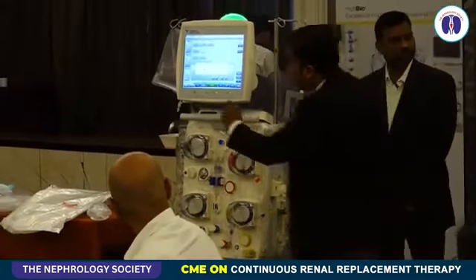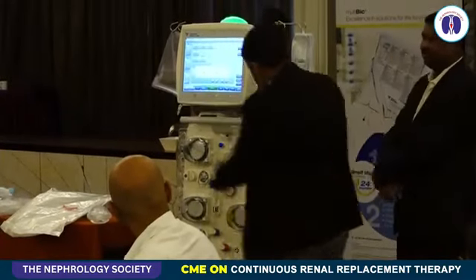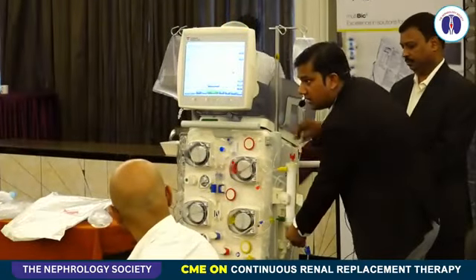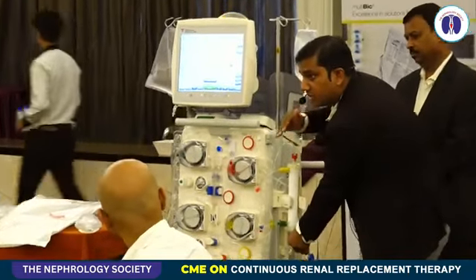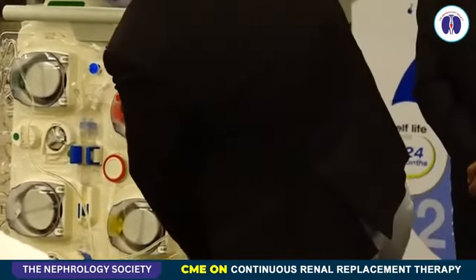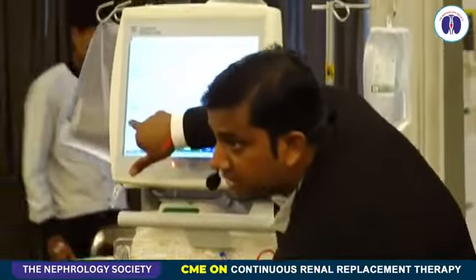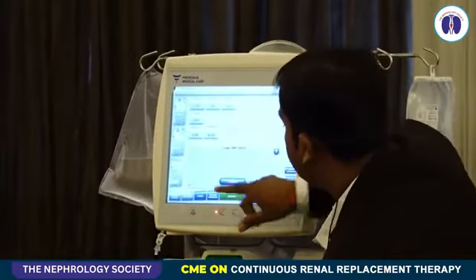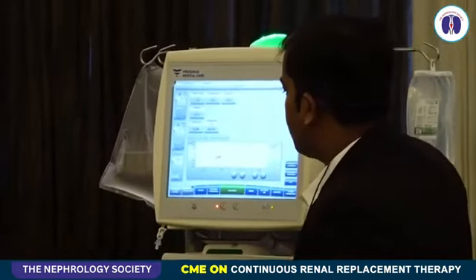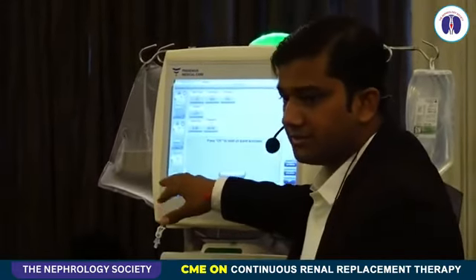I am kinking it. You will see the pressure will come up because this is coming on the filter, and since it's not passing the filter, the pre-filter pressure will increase. So this is pre-filter pressure.